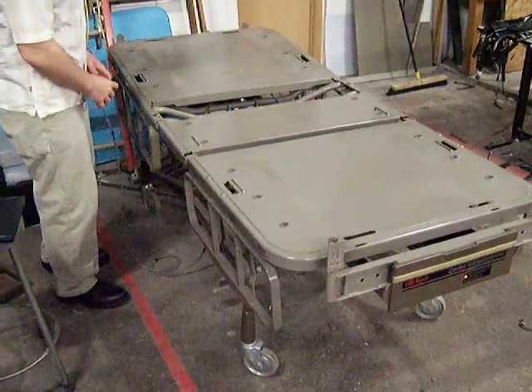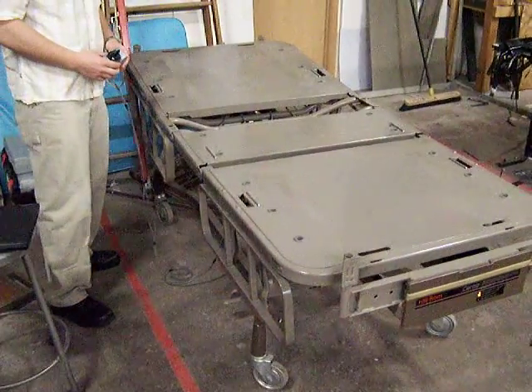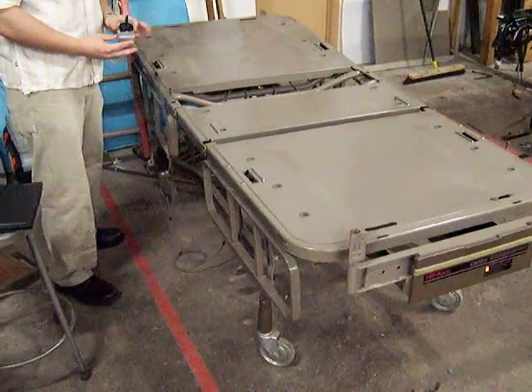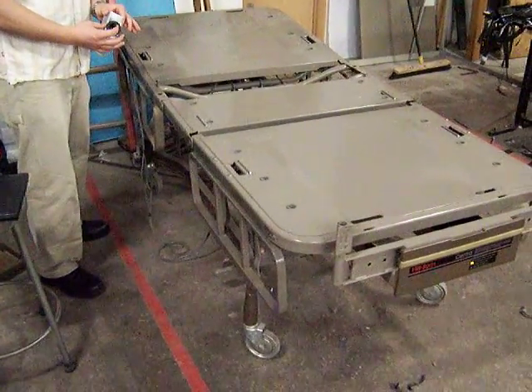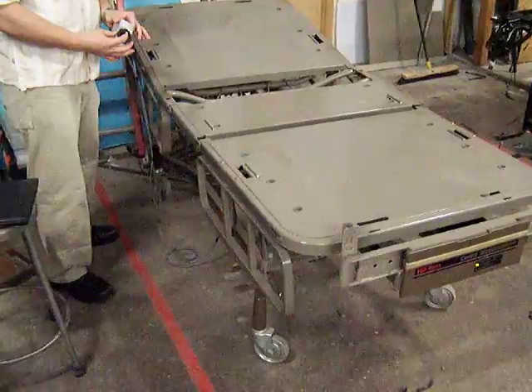Alright, here's the final design for our hospital bed controller. Scott has the joystick controller in his hand right now. Go ahead, start moving it slowly in one direction — it goes up, and as you push it further, it's variable speed so it goes faster.